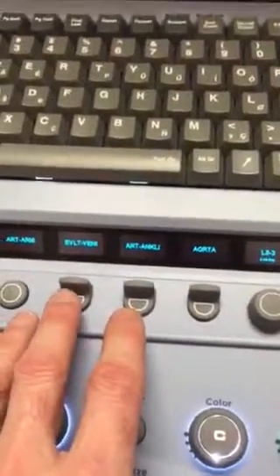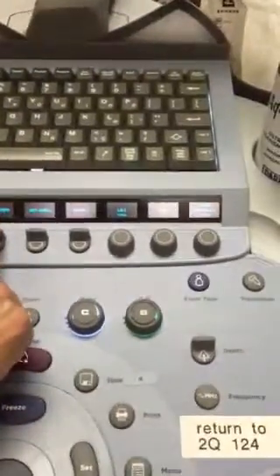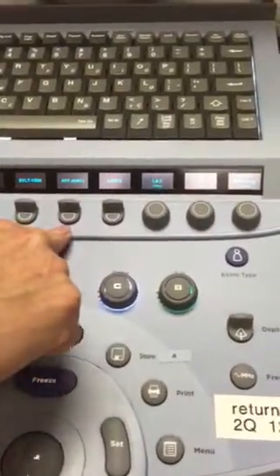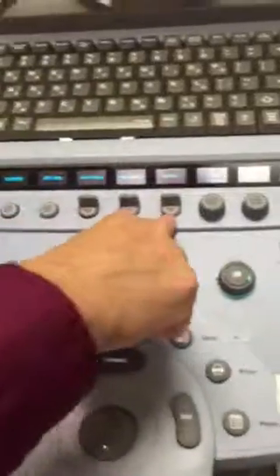We have 6 here. I can change one of these that you're not using. Let's go to just EVLT. That's what we use it for mostly. If you'd like me to change another one of these, if you don't do arms or arterials, like for pedal access, I can change one of these. You do? Okay. How about aorta?